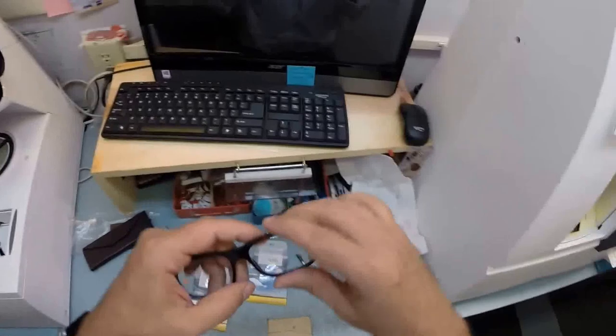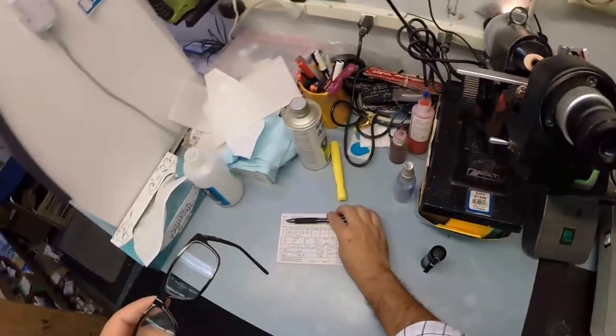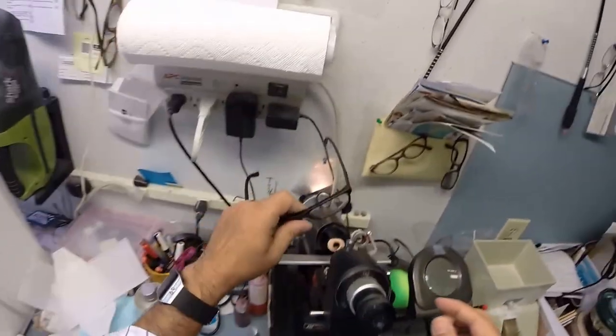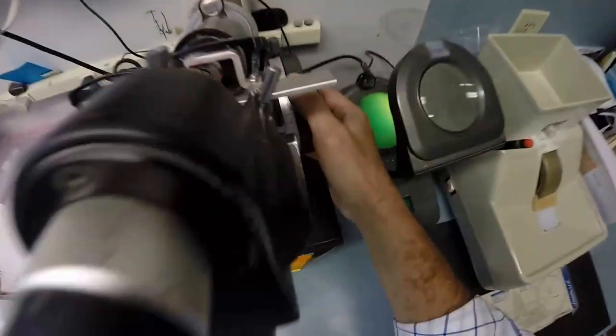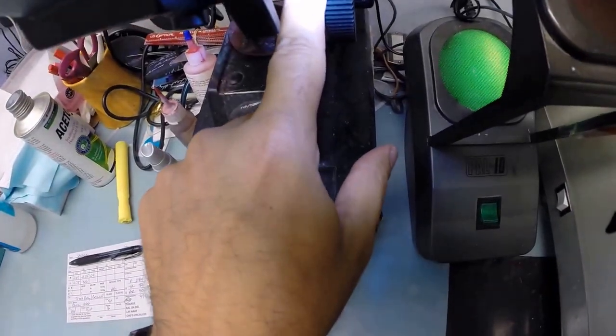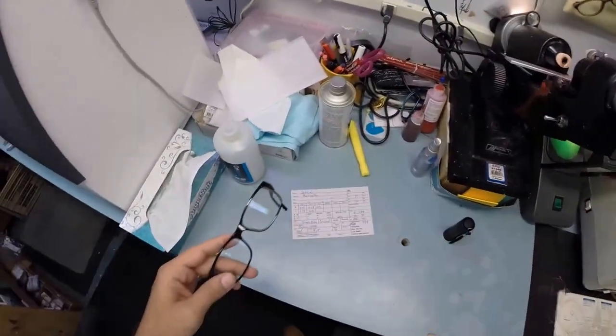I am a professional licensed optician. Although it's hard to tell that, too. But where are we at? Okay. So I'm going to put this in the lensometer right above that red dot, which is the pupillary distance of your left eye. Check the power. And I'm getting minus 1.75, one tick mark away from 2. So that is perfect. I couldn't make this any better if I had made it myself. Wait, I did make this. Okay. So your pupillary distance is 66.